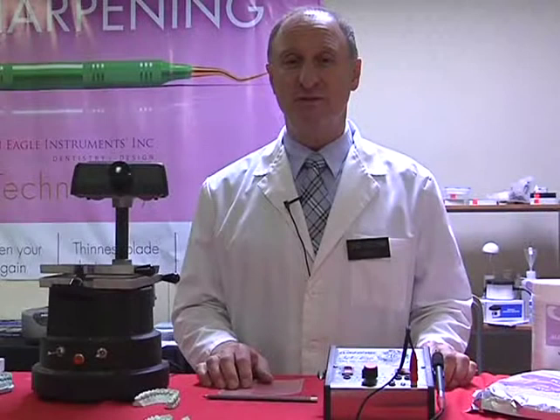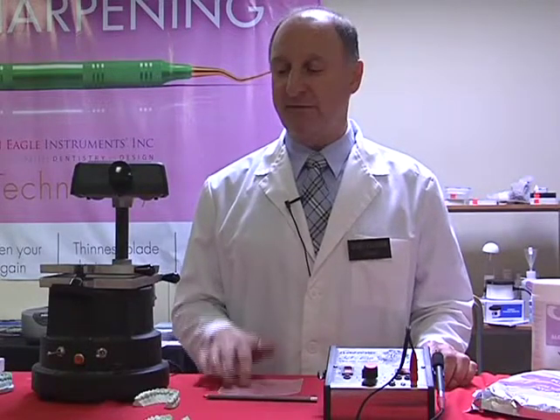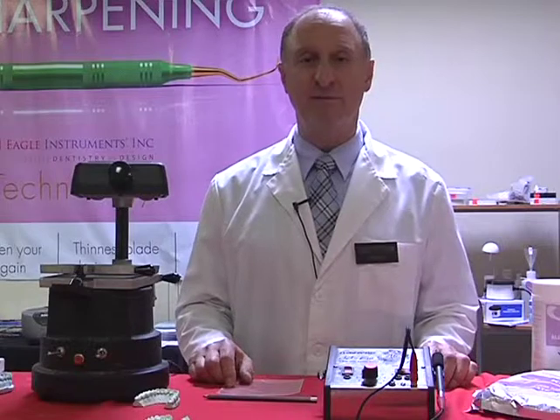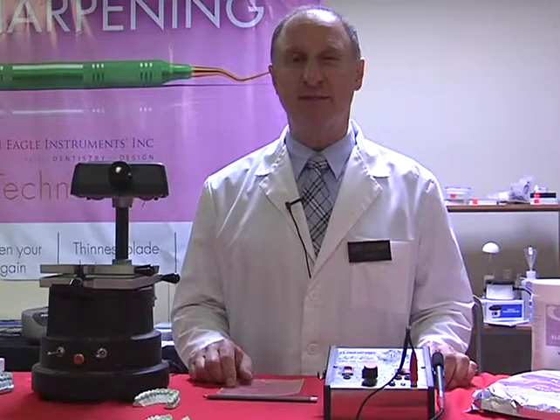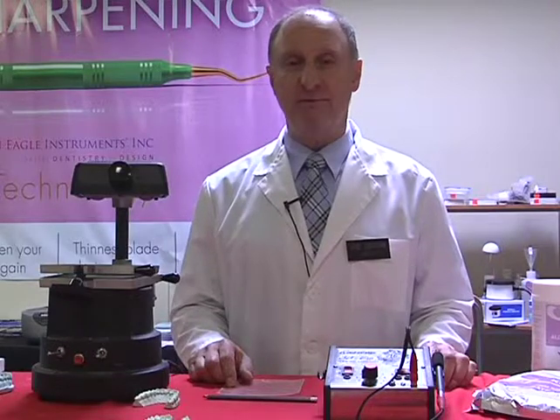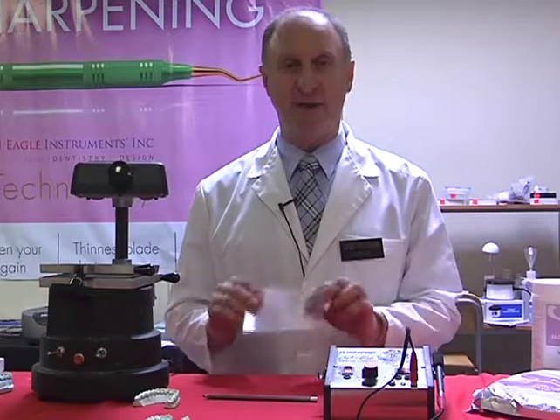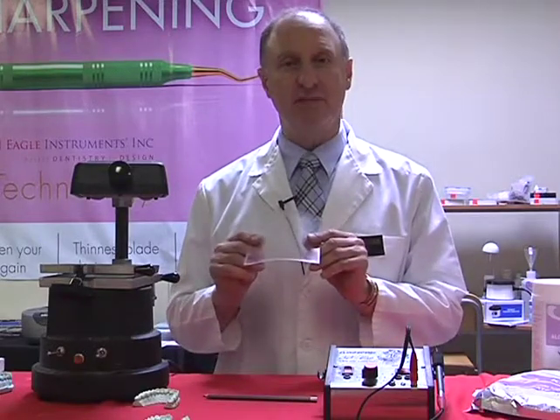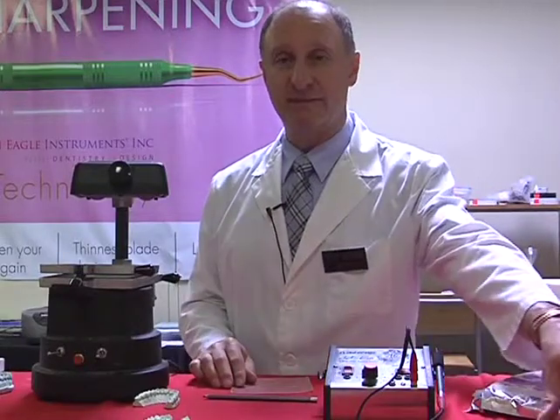And I'd like to talk to you today about making bleaching trays and mouth guards. In front of me I have one of the vacuum form systems. Now there's two forms of, let's say, thermoforming. Thermoforming is where we have sheets of material, which in this case we're having a look at the 040 bleaching tray materials. A variety of other products are out there, such as the mouthguard materials.